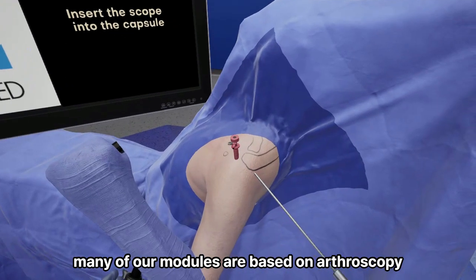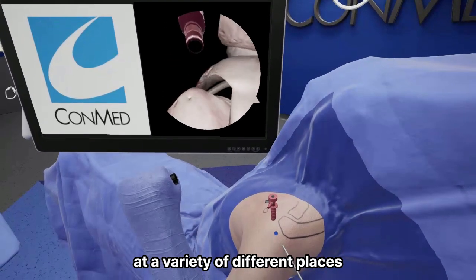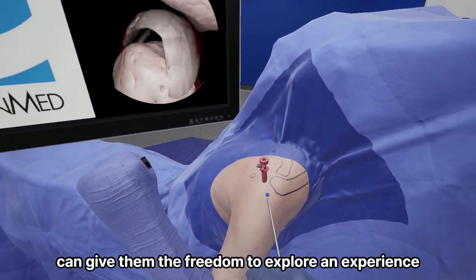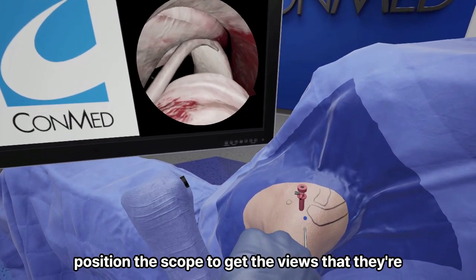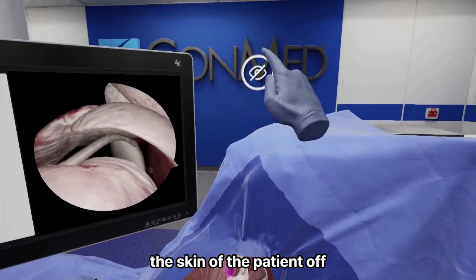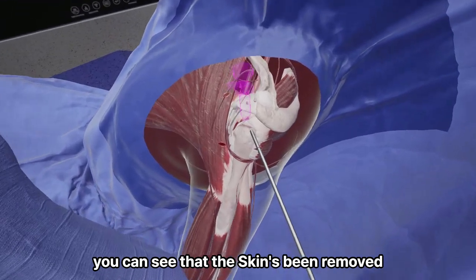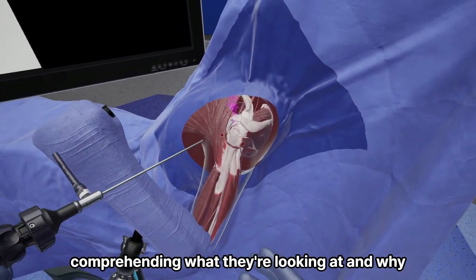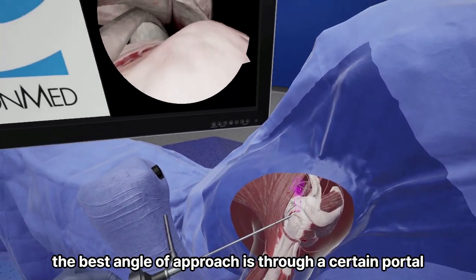Many of our modules are based on arthroscopy, and allowing a user to insert the scope at a variety of different places can give them the freedom to explore and experience how best to manipulate and position the scope to get the views that they're after. And the ability to actually just turn the skin of the patient off. If I press the button up there, you can see that the skin's been removed. This can aid a learner in really comprehending what they're looking at and why the best angle of approach is through a certain portal at a given time.